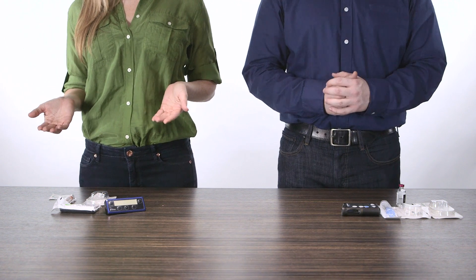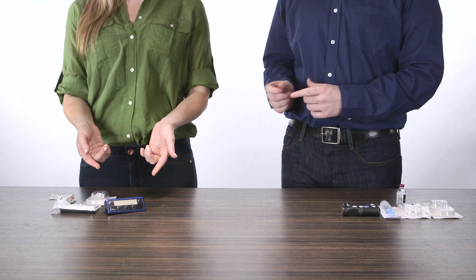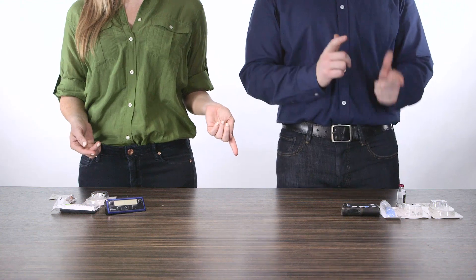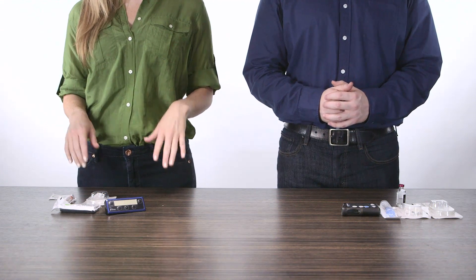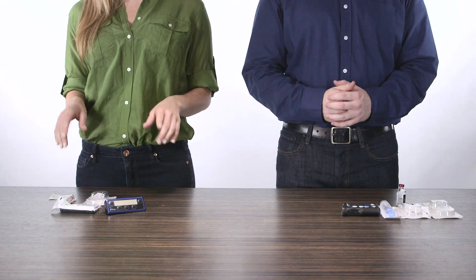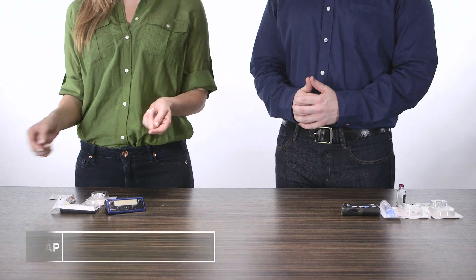Today we're going to show you how to set up your insulin pumps. I'm using Snap, and he's using the Market Leading Pump. And to make this short and sweet, we're going to fast forward, but don't worry, you'll be able to keep track of the steps right here.